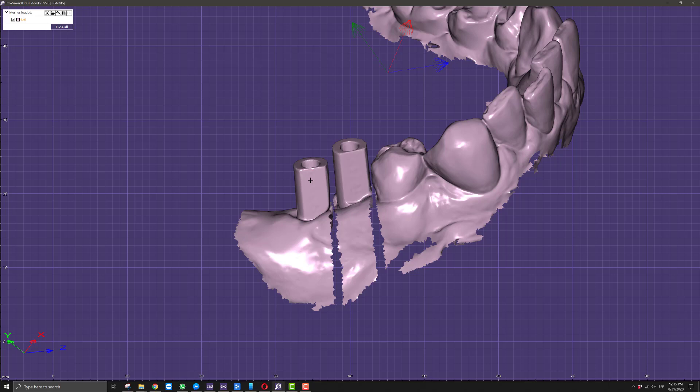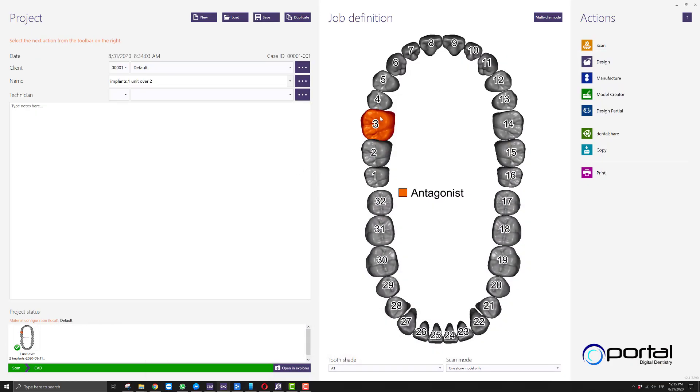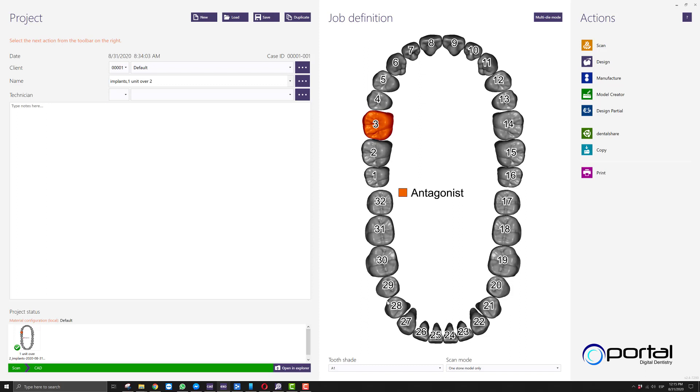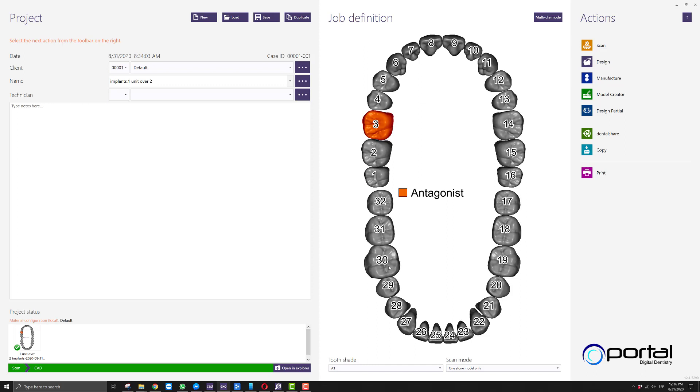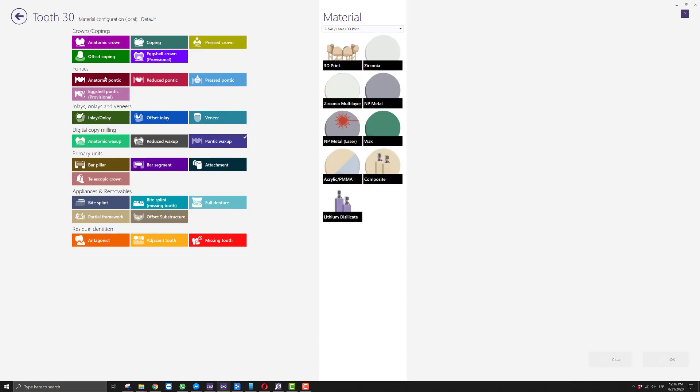This is going to be a two-step process which means we'll end up creating two different order forms. For the first one, we'll select our antagonist. Make sure to select the type of unit we want to create, whether it's a first molar, second, or premolars. In this case, we'll say number 30. You can either select pontic wax up or anatomic pontic. I just like using the wax up restoration types.